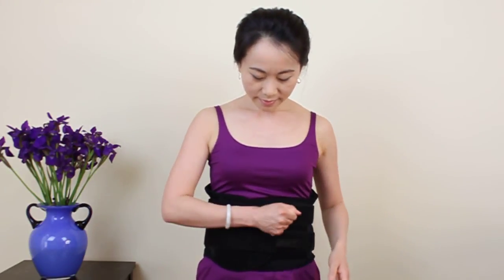Repeat the same procedures for the upper straps. The bottom strap is a very strong one.